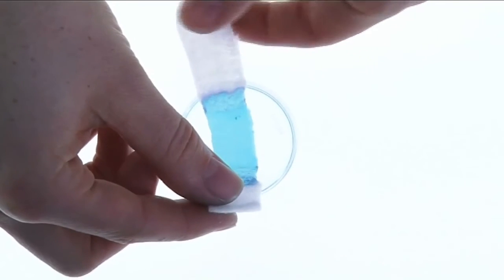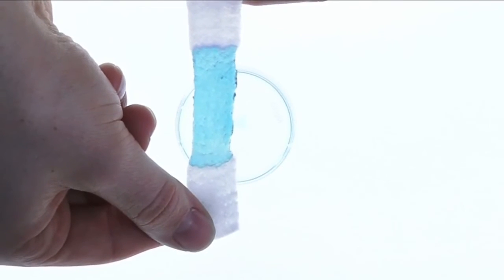By gelling, locking in and retaining the fluid, hydrofiber technology prevents the spread of fluid onto the surrounding area.